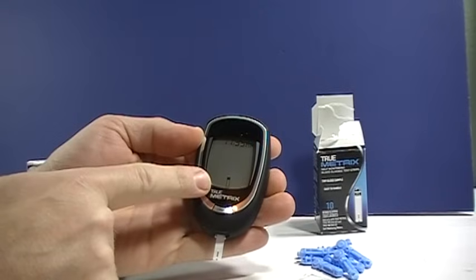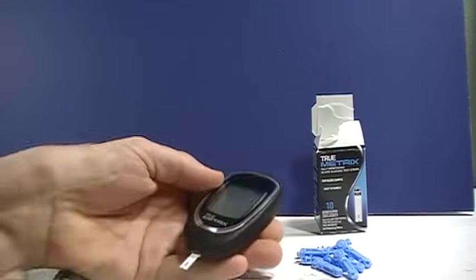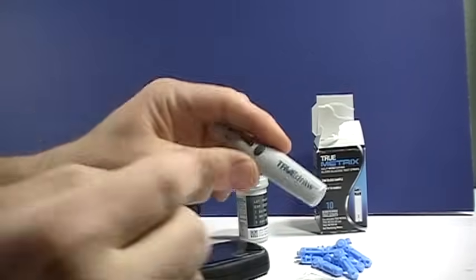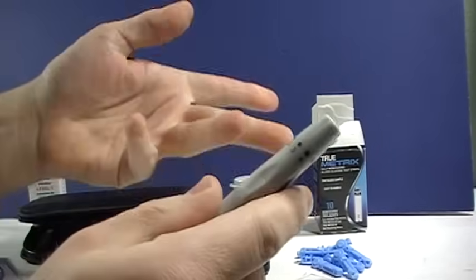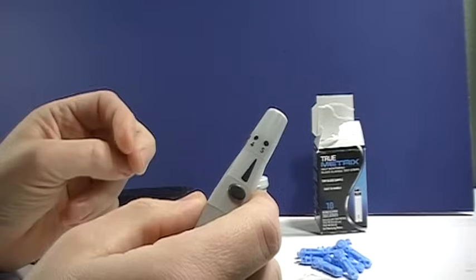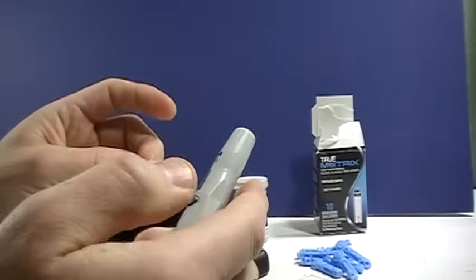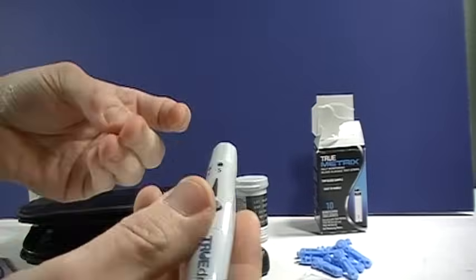Now it's recommended you wash your hands with warm soapy water before this. They don't usually recommend alcohol pads anymore, but just make sure your hand is clean to prevent infection.